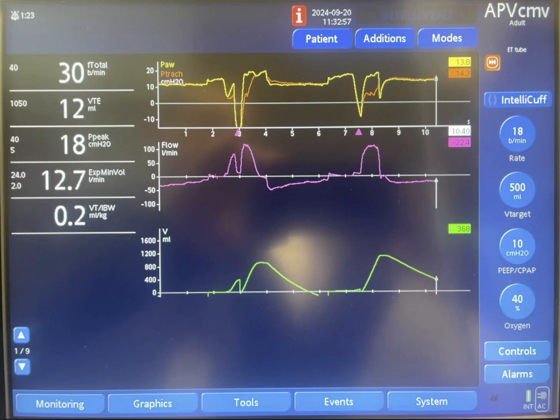However, there was no flow and no volume in this breath. The pressure that is given is determined by the tidal volume generated in the previous breath. But in this breath, the pressure did not result in any flow or tidal volume. So we need to understand what happened to prevent any flow into the system.